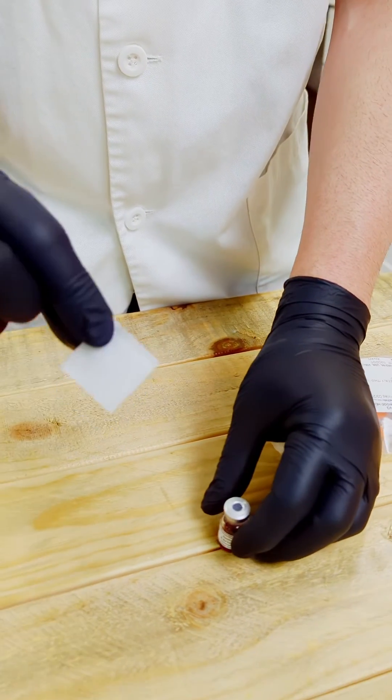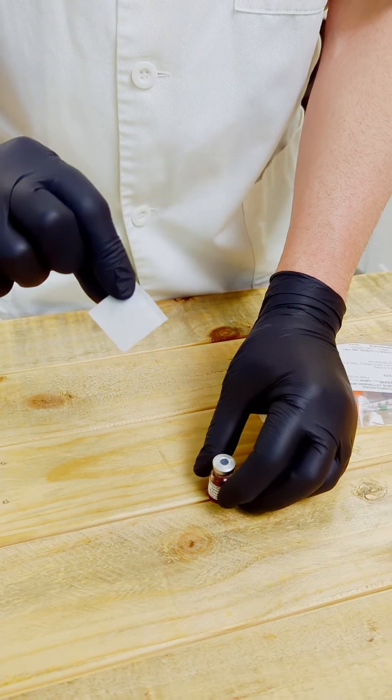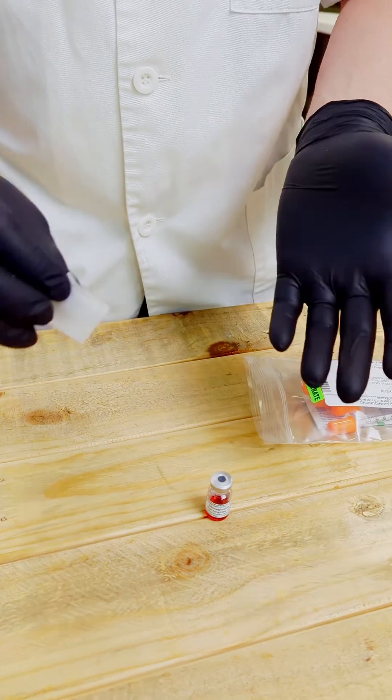And then keep this alcohol pad for your injection site to sterilize that as well. Either that being the stomach, the thigh, or the hip.